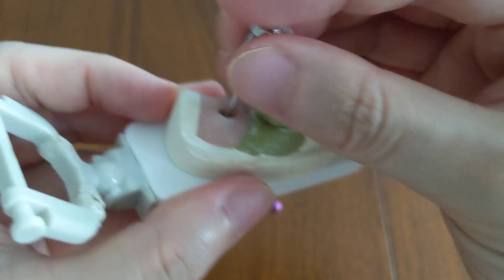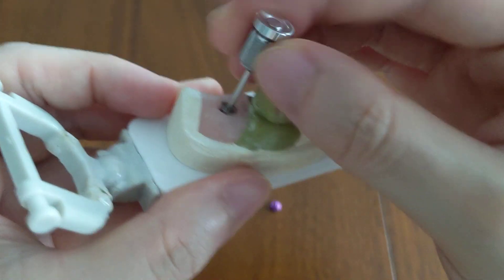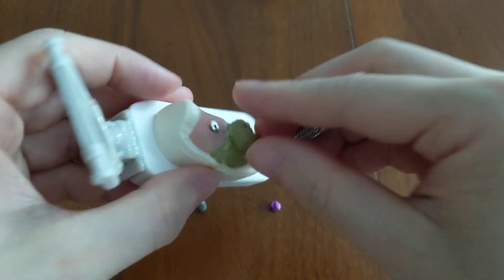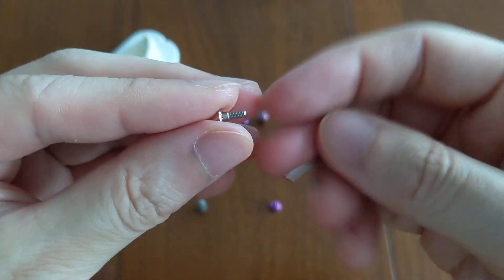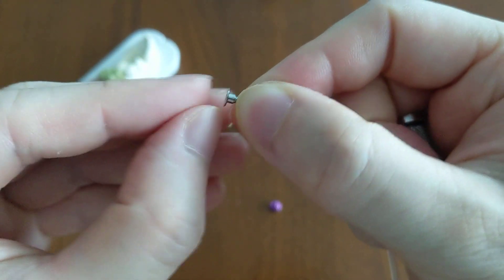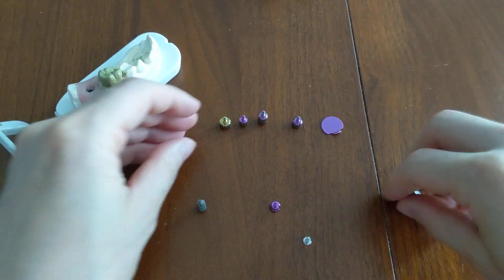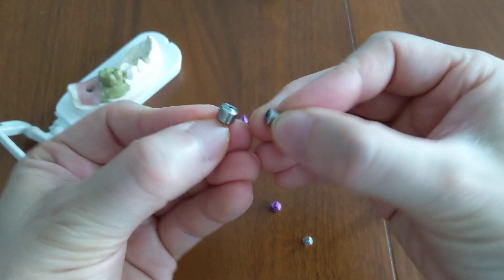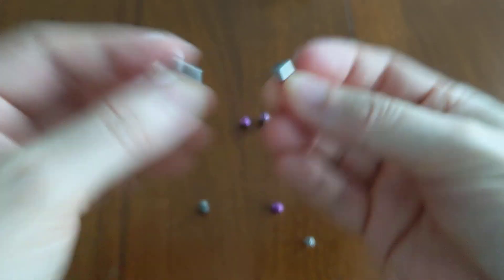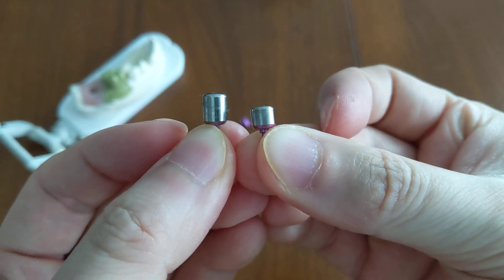That is a defining attribute of the cover screw: it is placed immediately after the implant is inserted into the jawbone, so the gums don't grow into the implant. The implant is then left to heal undisturbed because the gums cover over it. Healing abutments come in various different sizes — some are much wider and some are also a lot longer.